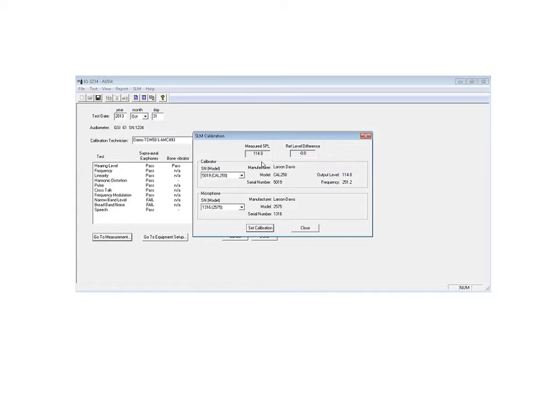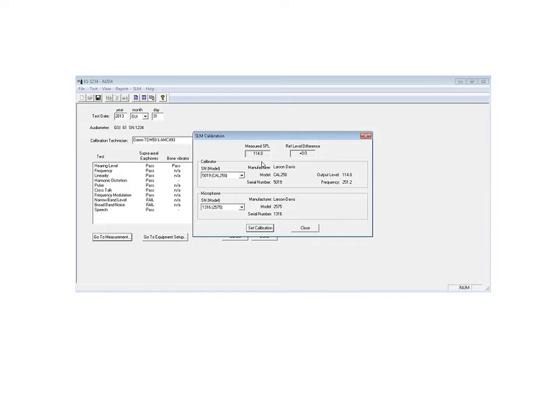Ideal would be 114.0. If you get it to 114.0, we can probably continue. We don't need to make any changes. If for some reason it's off by a little bit, then you can go ahead and do a set calibration.